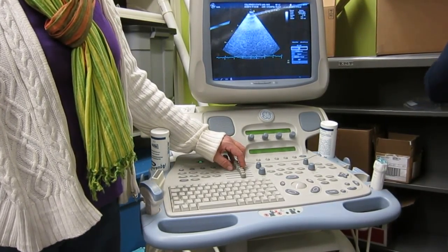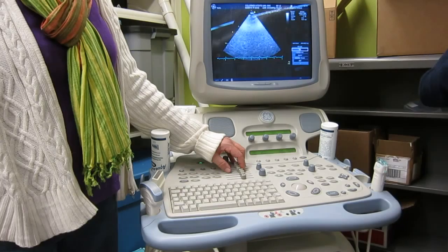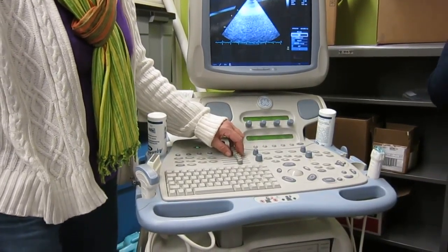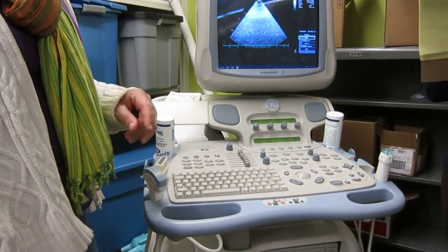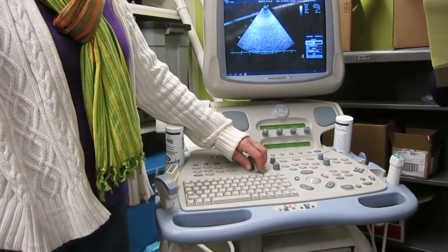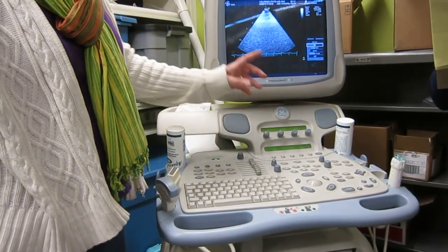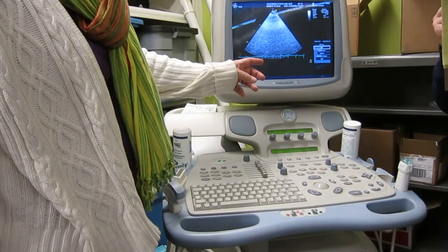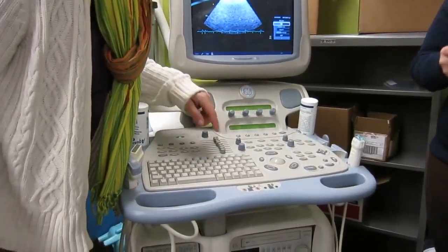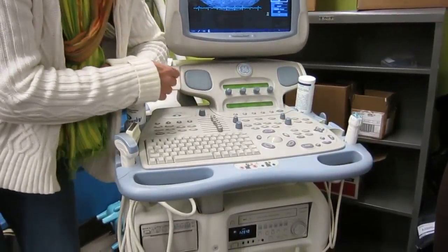All right, and then you're scanning. Now there are lots of other controls we can use, and we'll see what it looks like on the real hardware in a second. These are your main gain controls, the main brightness controls, but there are things called gray maps. Let's see, it doesn't actually tell us where it is here. Well, let's look at some of these first.